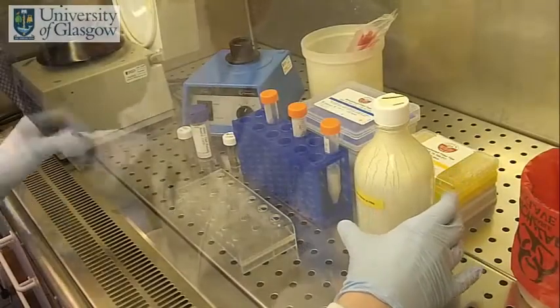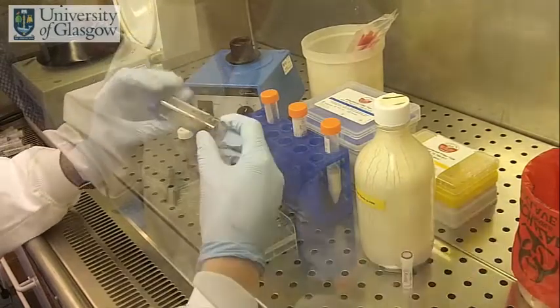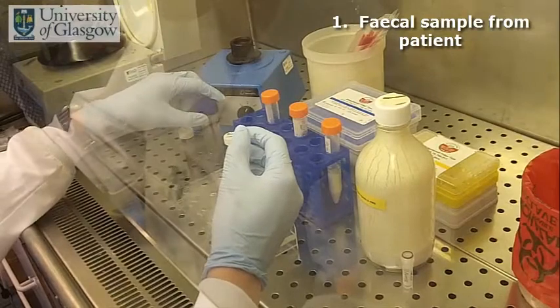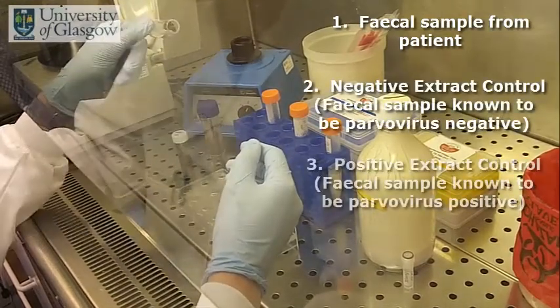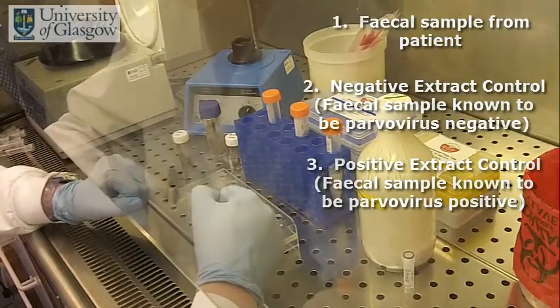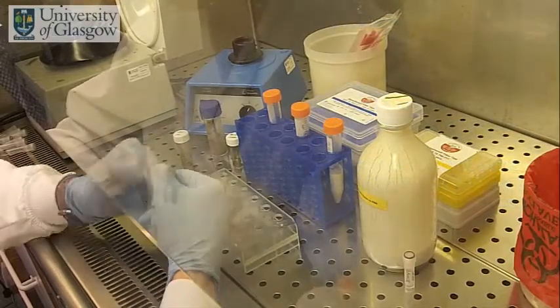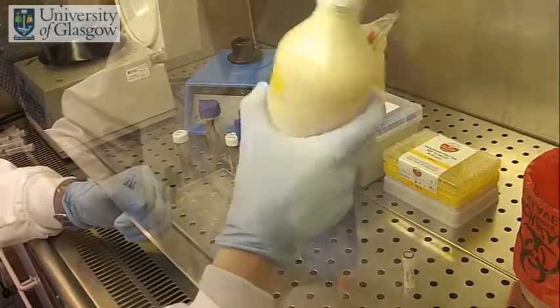The sample required for a parvovirus PCR is a fecal sample or possibly gut contents. As well as the fecal sample from the patient, we require a negative extract control and a positive extract control. The extract controls are there to show, in the negative sense, that the assay is not contaminated, and for the positive, that the assay extraction process has actually worked correctly.